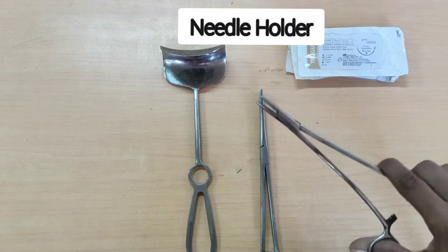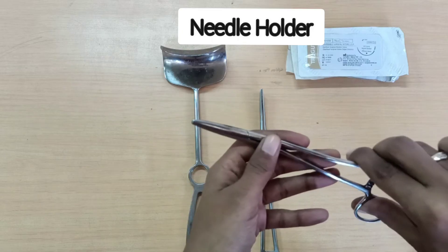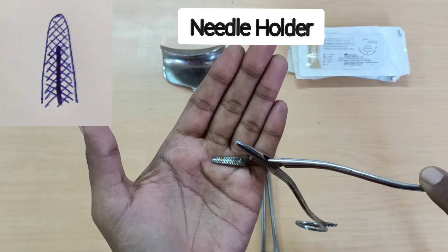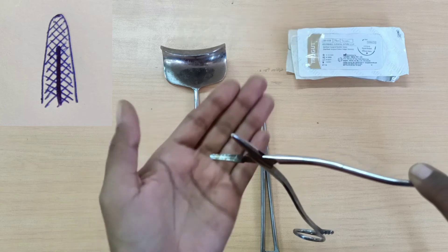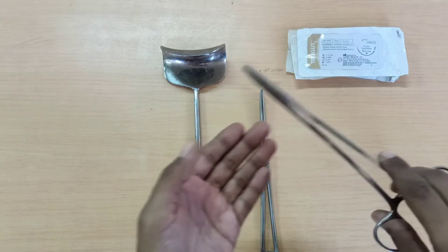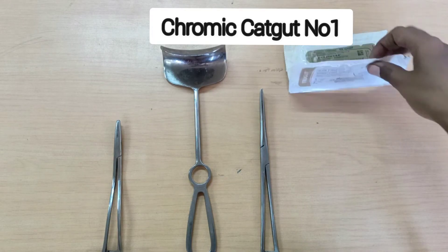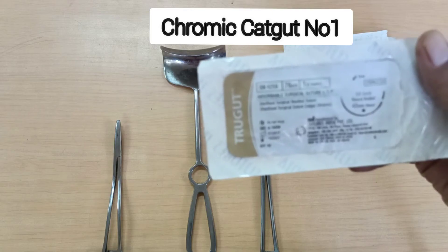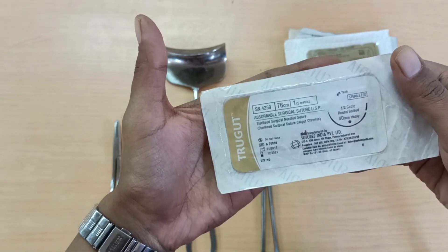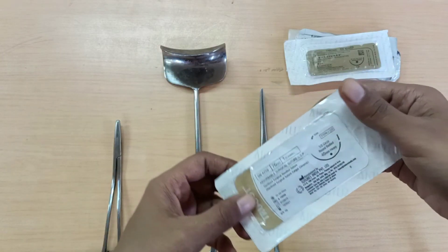Next you require a needle holder for suturing the edges of the uterus. It has a lock, a box joint, and over its working end it has crisscross serrations with a groove inside for a better hold on the needle. For uterus stitching you will require chromic catgut number 1 suture, and you are going to stitch it in two layers. The needle used is both curved and a round-body needle.